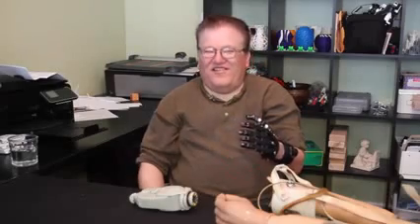It's amazing that we're even comparing a $50 device with a $40-some thousand dollar device, but that's great that it's been useful. This one I've had for about three years, but the first three fingers move — the other two are just not really functional, just for cosmetics or whatever. But the 3D one has all function on the fingers, so I like that better.